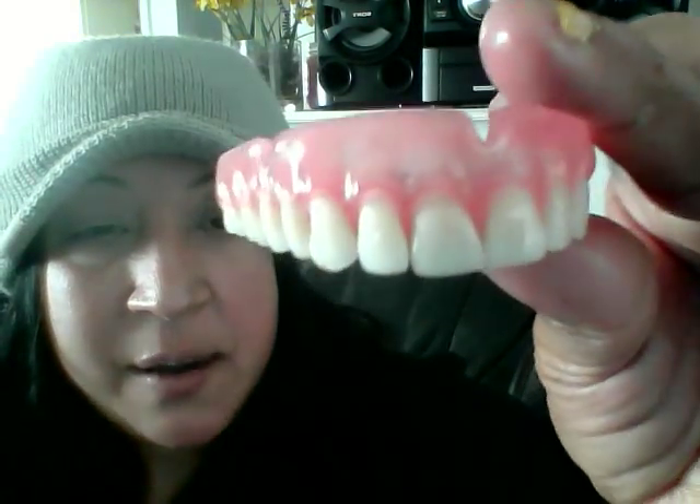It hurts too — that's a big denture. I could send it back and get another size; I just choose not to. These aren't something I'm going to be wearing as backup anyway. I got this just to show you the difference between ultra thin and ultra thin clear, and the custom versus the display denture from Russell Klein. This is actually one of the displays — it's a beautiful denture and this is what you'd actually get. Some people have had a great outcome with these dentures for permanents and immediates; it just depends on you. But always ask questions, do your research, and know what you're getting before you make a purchase.